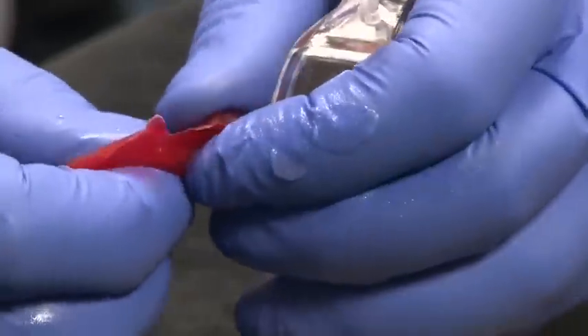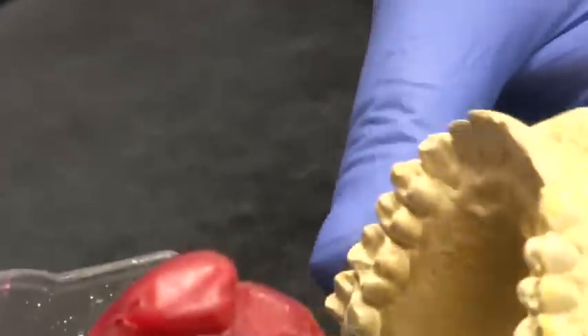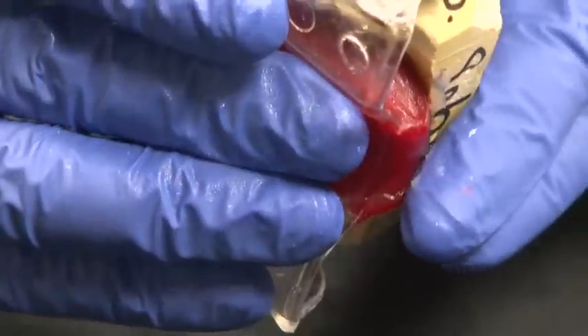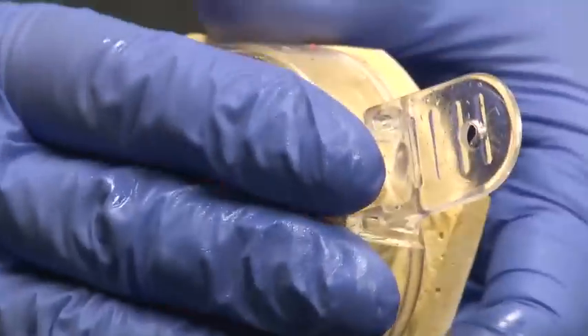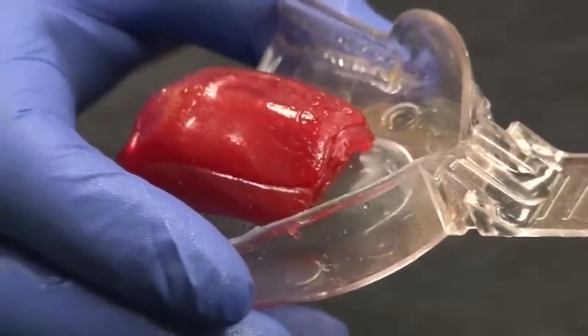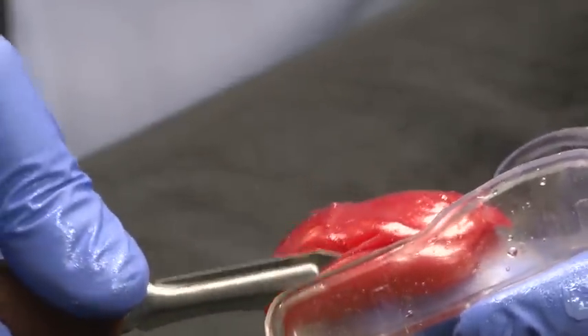If it's not as much clearance as you want, take a small amount more wax and add a little bit back on top, then push it back on so that you have whatever thickness of clearance you want all the way around. You might have excess coming over the side, so this is where you take your Bard-Parker knife and just trim away the sides.